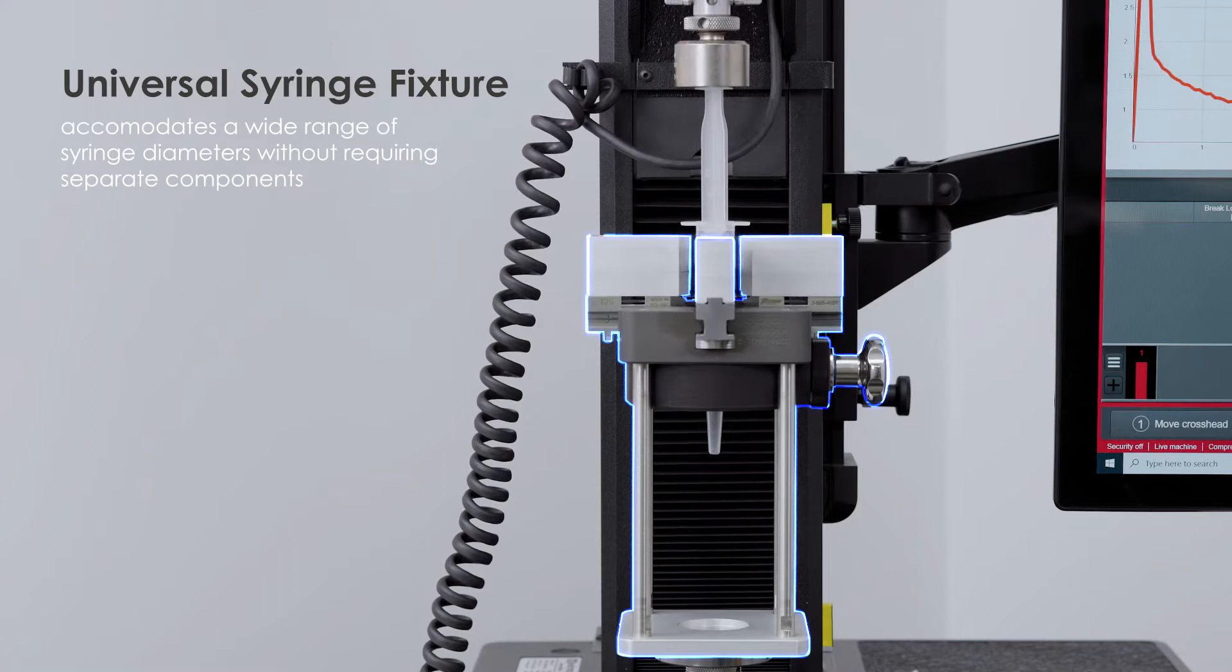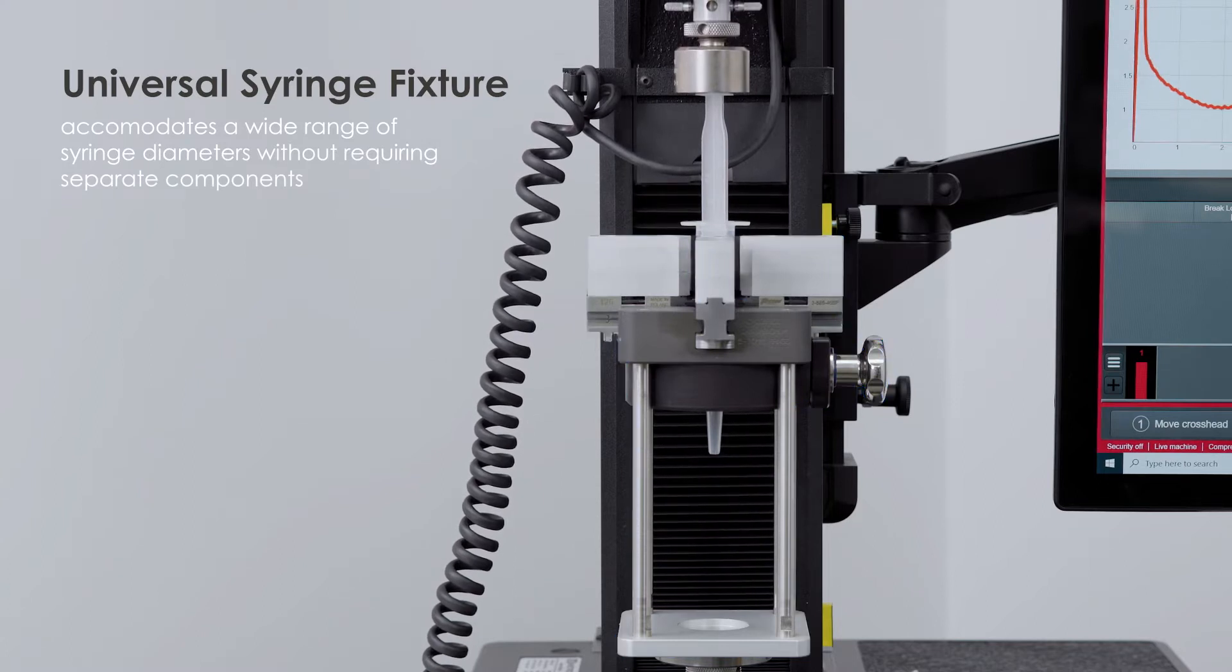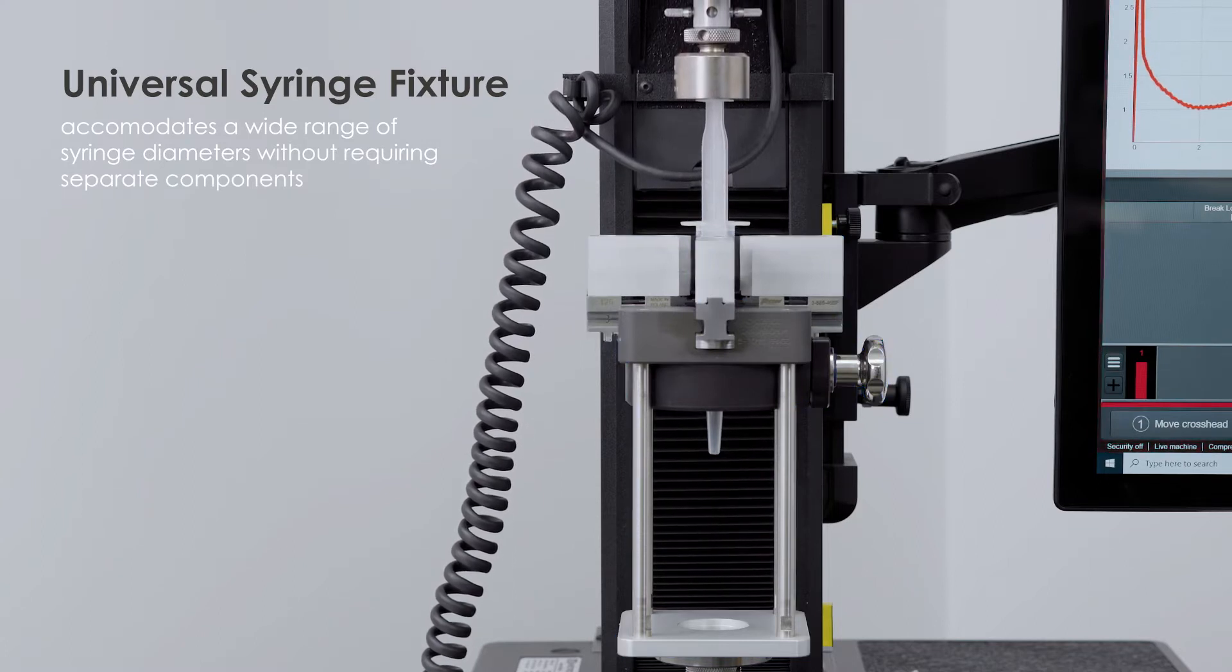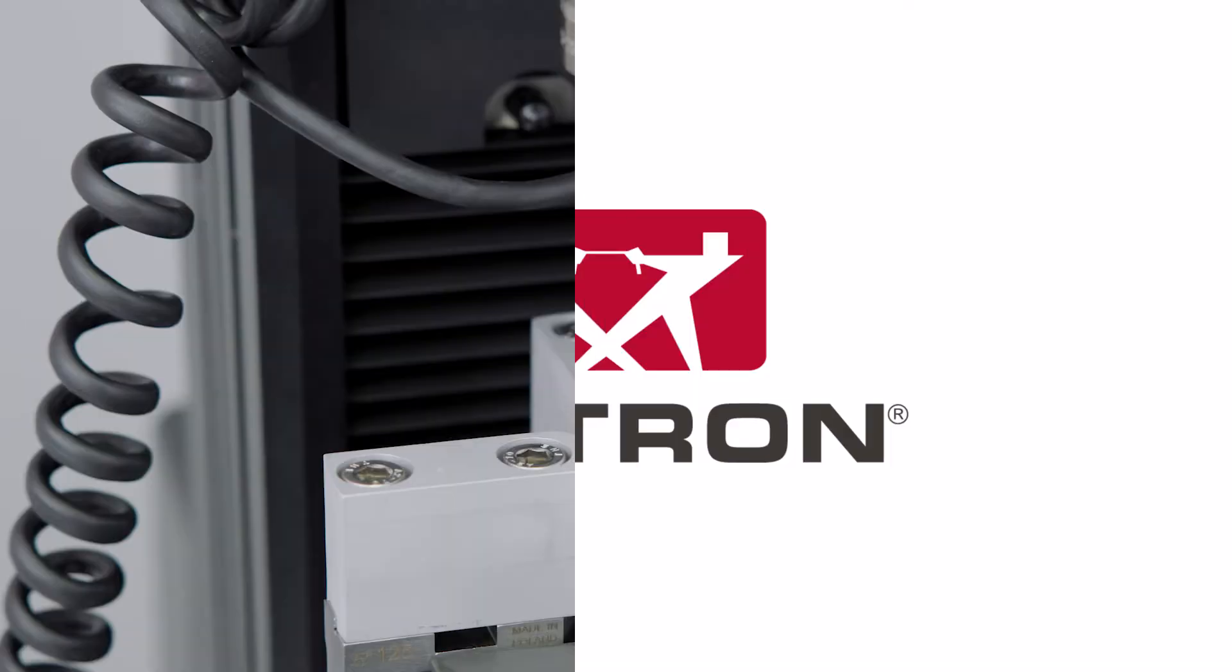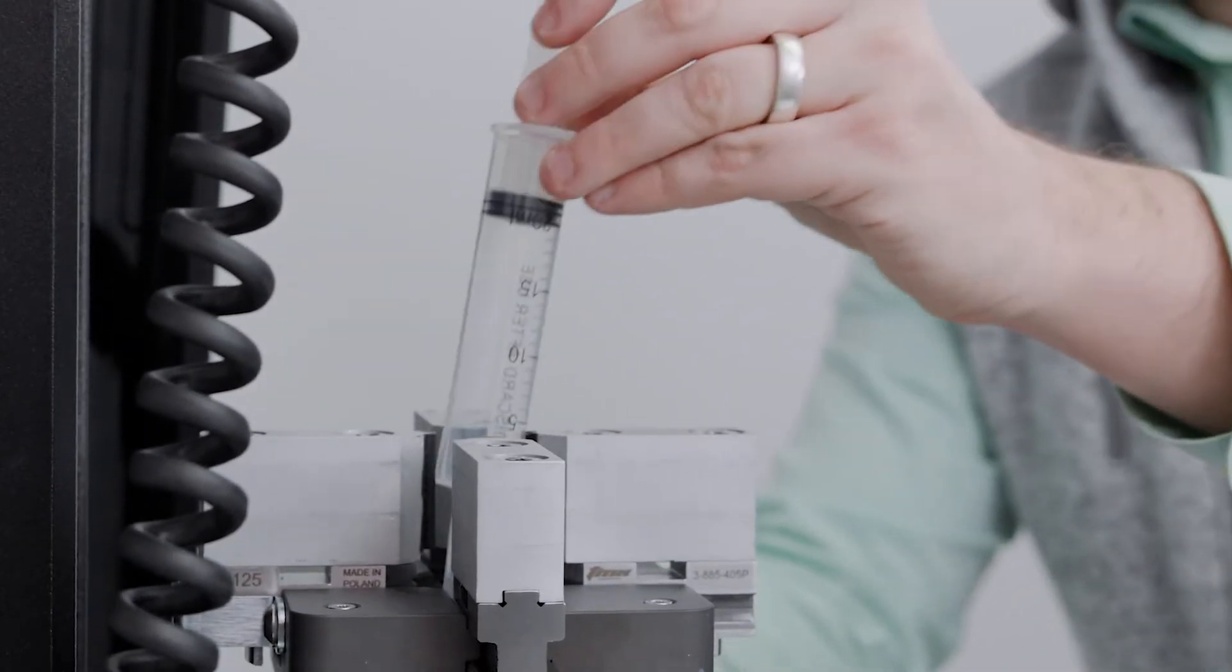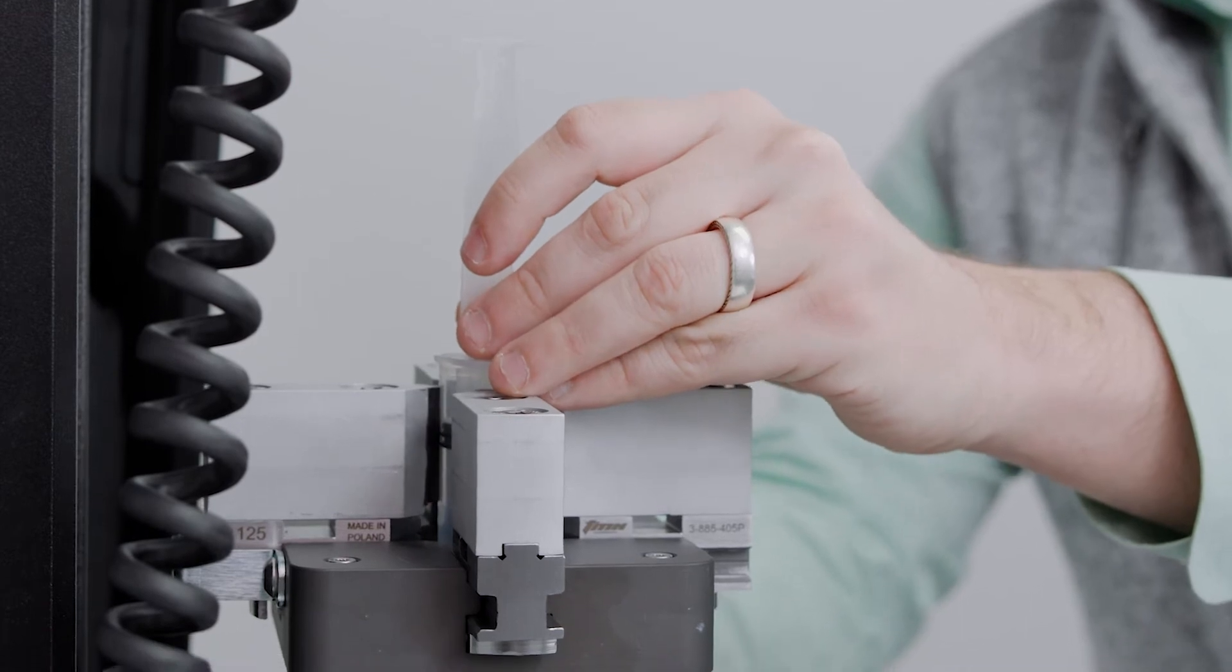A universal syringe fixture allows you to accommodate a wide range of syringe diameters without requiring separate components. The self-centering design also ensures that the device alignment is repeatable between tests.